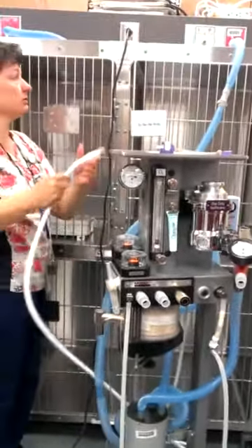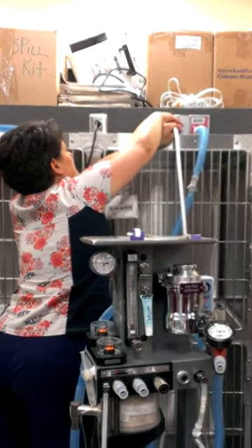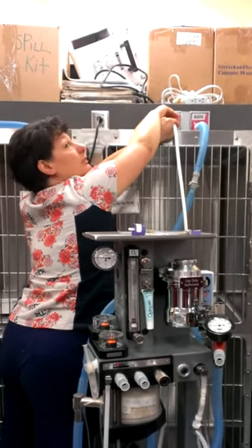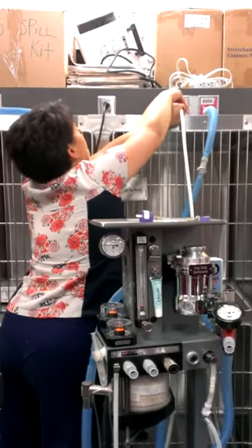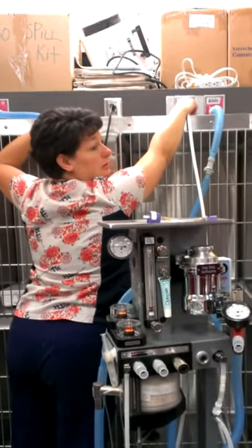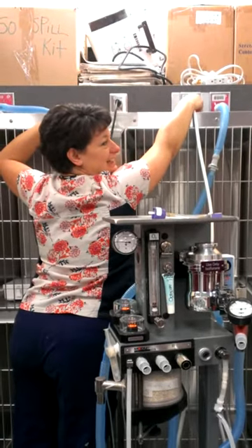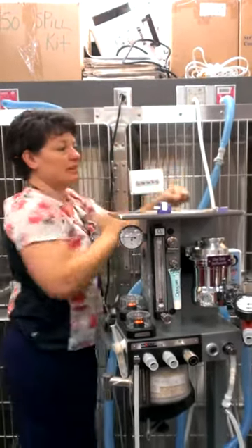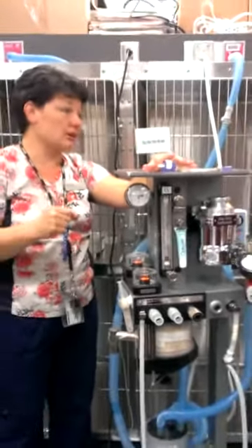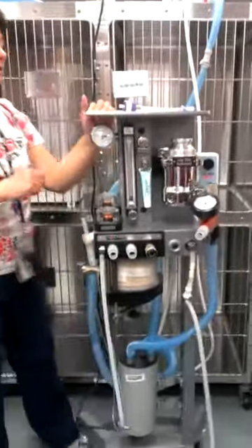The other thing is the oxygen. When you attach it, it starts to let a little air out until it compresses the little valve properly and seals it — just like when you go to hook up your tires and you're pumping them up. You keep going until it stops. So now my machine is ready to go.